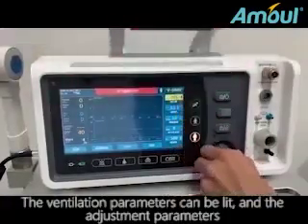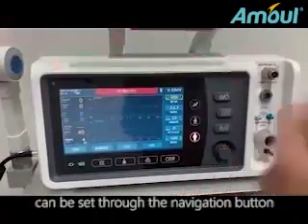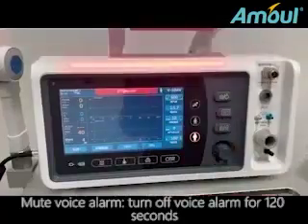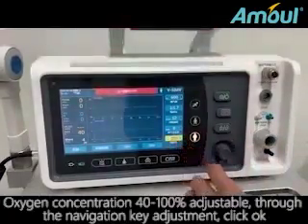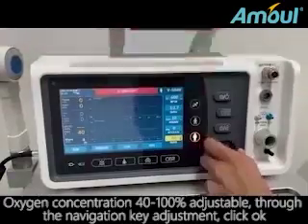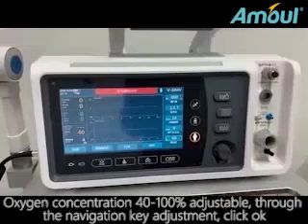The ventilation parameters can be lit, and the parameters can be set through the navigation button. Mute voice alarm. Turn off voice alarm for 120 seconds. Oxygen concentration 40 to 100% adjustable. Through the navigation key adjustment, click OK.